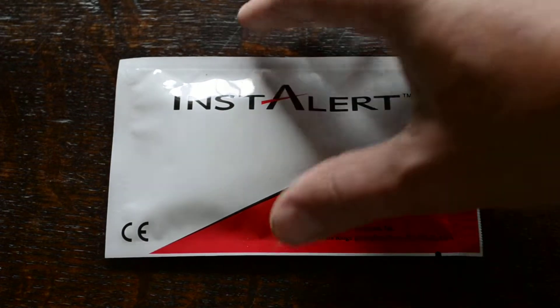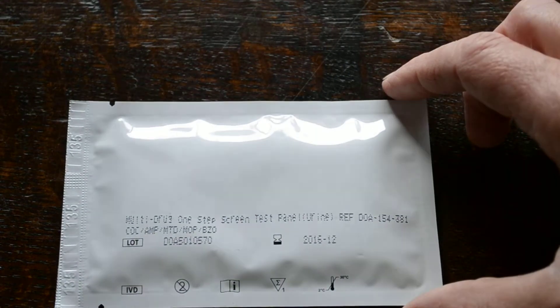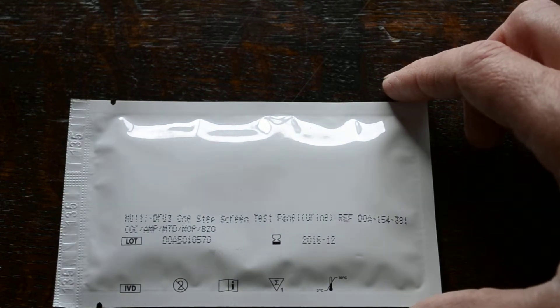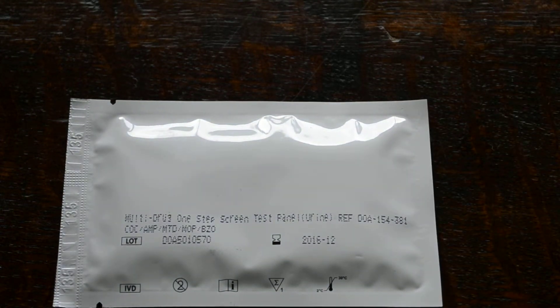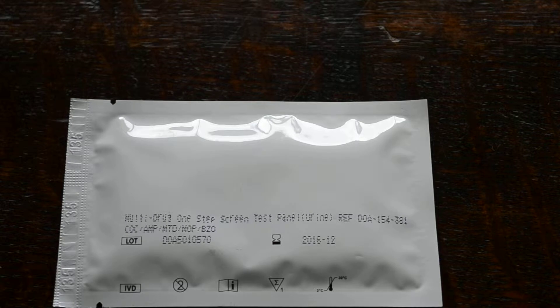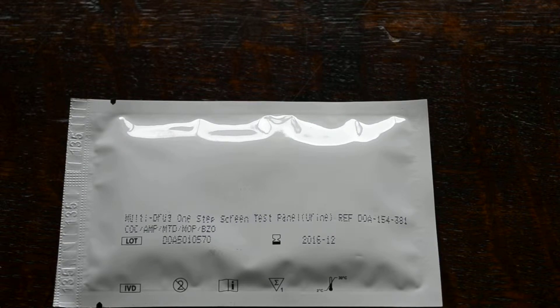This combination five panel screens — if we show you the reverse of the foil — for cocaine, amphetamine, methadone, opiates, and benzodiazepines. It's an ideal combination for drug treatment agencies either looking for compliance testing, opiate screening, sedative, tranquilizer, and drugs of abuse screens.